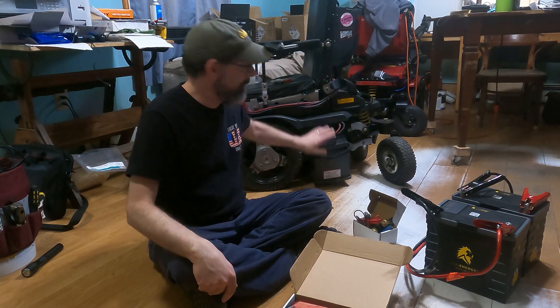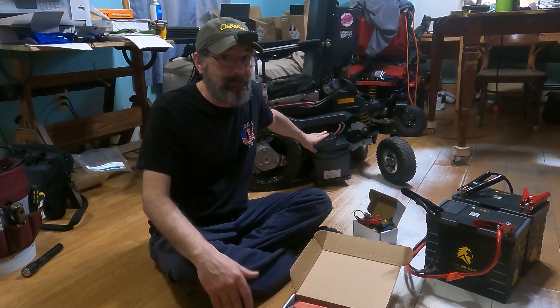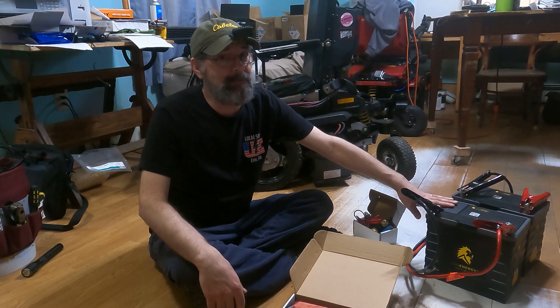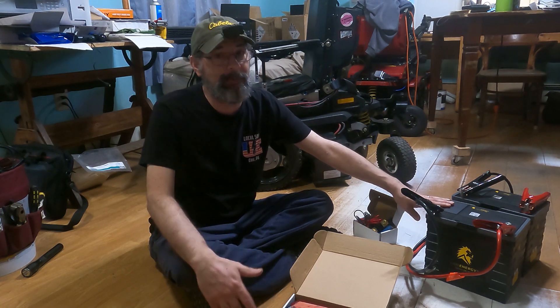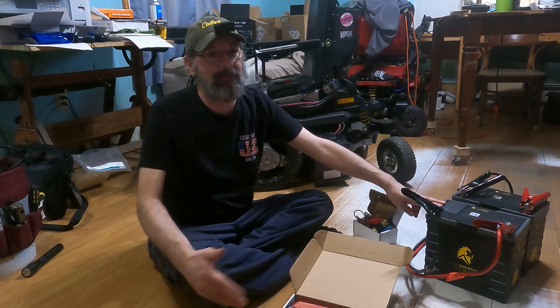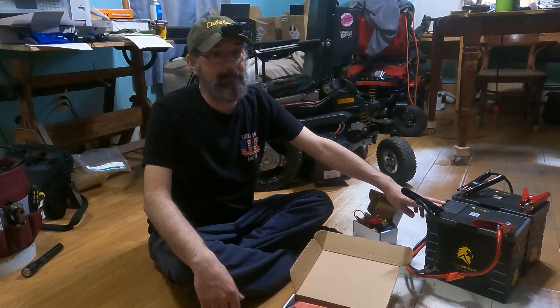We're looking at going from the current 74 amp-hour lead acid batteries — where you really only have about half available, so 37 amp hours of usability — to 105 amp-hour lithium where you have the full 105 amp hours available. Lithium keeps higher voltage for longer, so we're looking at possibly three times the runtime out of the chair: the difference between charging once or twice a day versus going two or three days without ever plugging in.